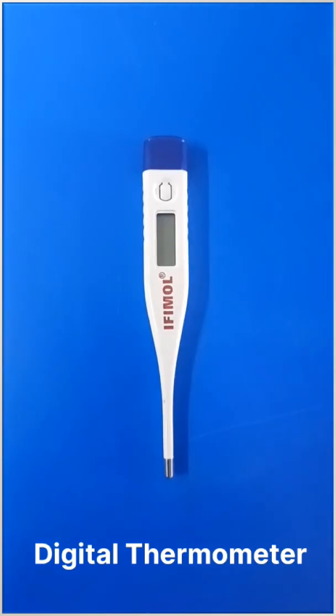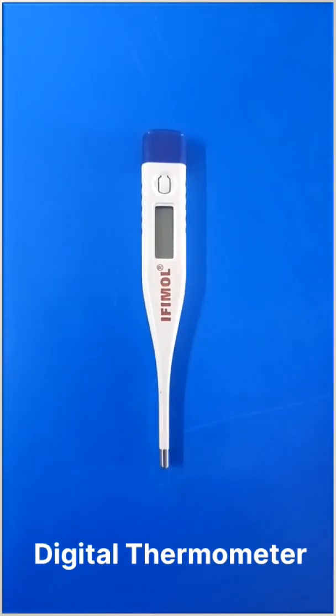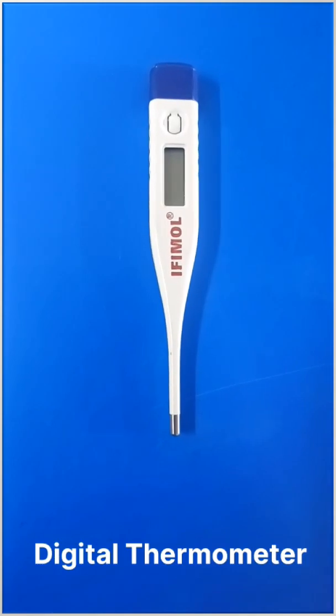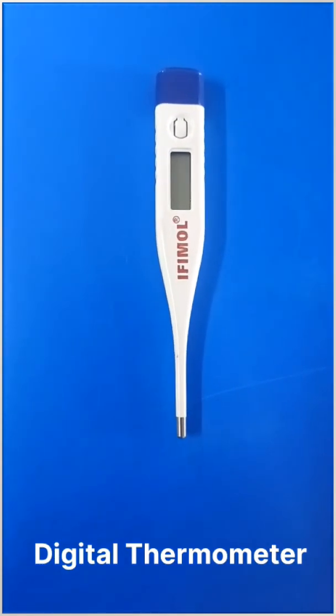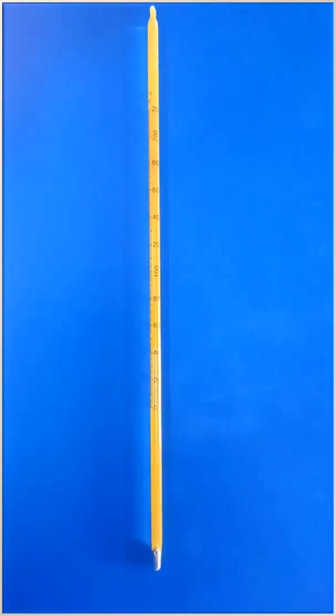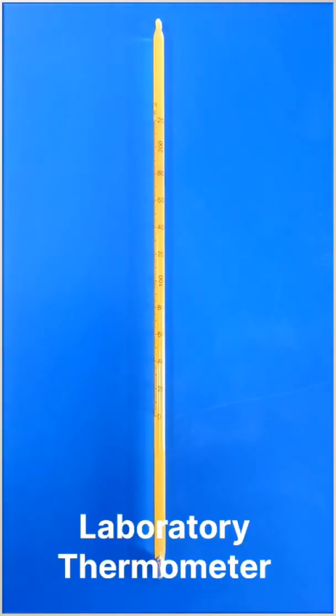This is a digital thermometer. It is a medical device that uses electronic sensors to accurately and quickly measure the body temperature, displaying the results on a digital screen.